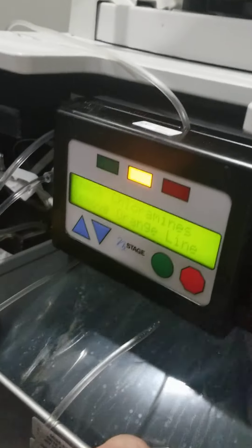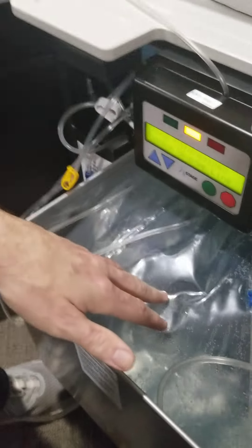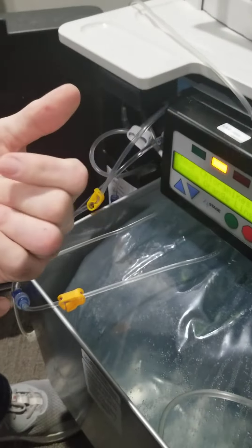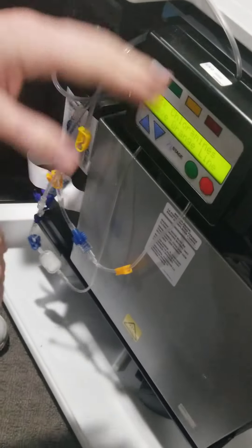The other thing I have to do is set up the dialysate. I mentioned yesterday that I make a sack of dialysate before treatment. This whole sack right here is full of fluid — this is the dialysate and it takes seven hours to make. The sack comes with a little bit of premixed chemicals in it and I place that in here and hook up the lines. There's a heavy-duty water filter over here that filters the tap water before it goes into the sack. It's very warm because there's a warmer in here — the dialysate doesn't actually touch the blood but it could cool it down, so the warmer keeps everything at body temperature. The sack is very heavy.